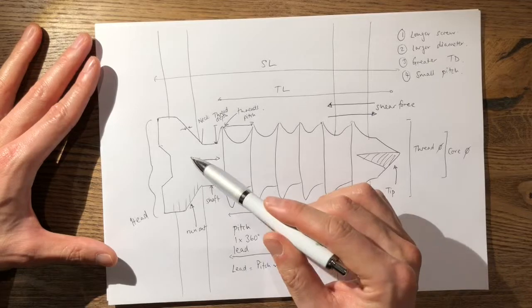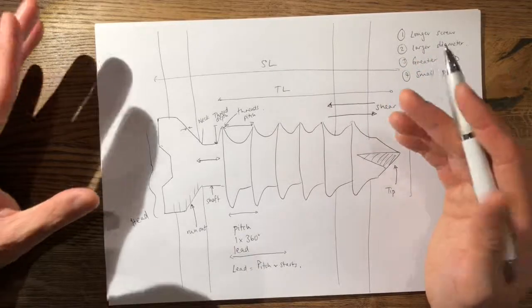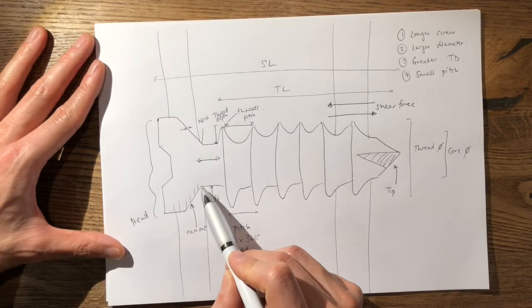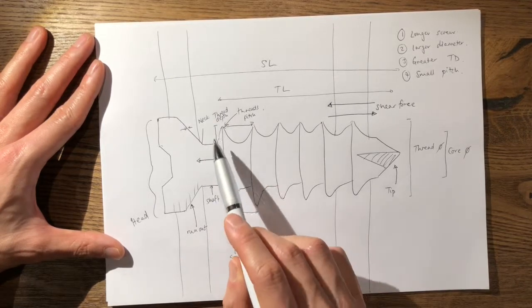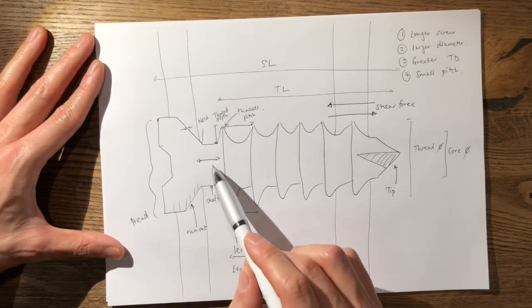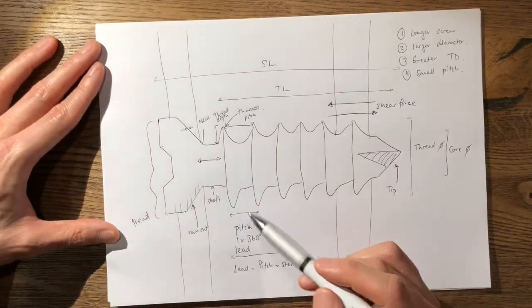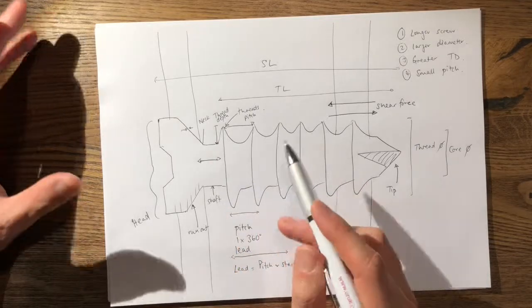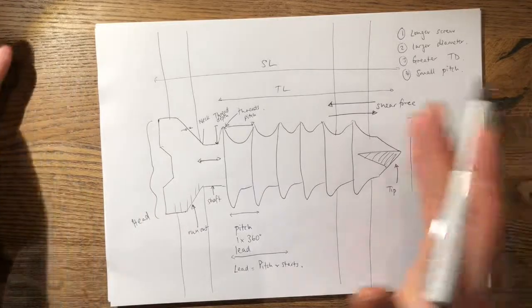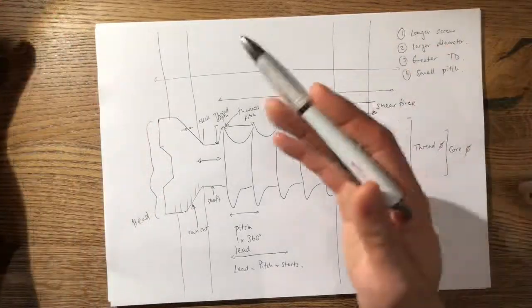When locking screws are locked into the plate and the construct is loaded to failure, they will typically fail at the neck — the weakest area — which is why locking screws have a much higher core diameter relative to thread diameter, as bending stiffness is critical. The second failure mode is catastrophic pullout of the whole construct simultaneously, rather than sequential screw failure.